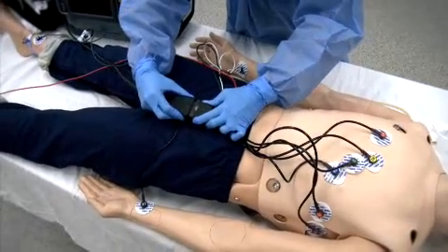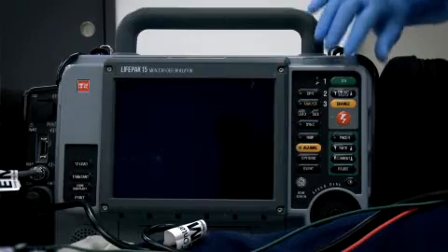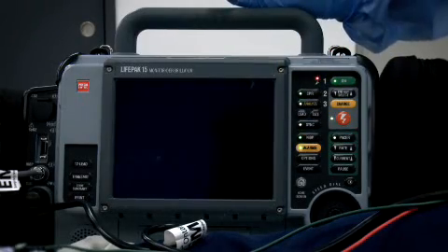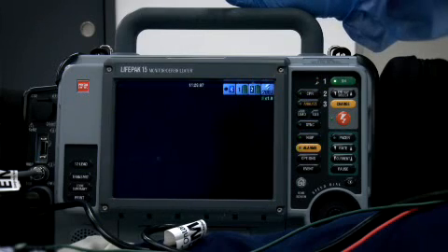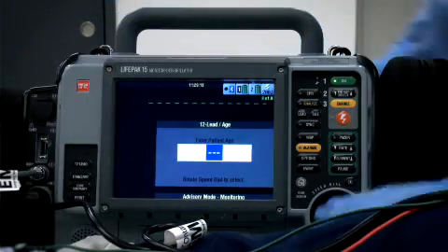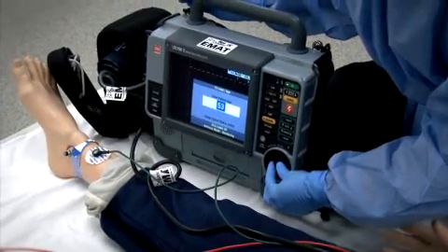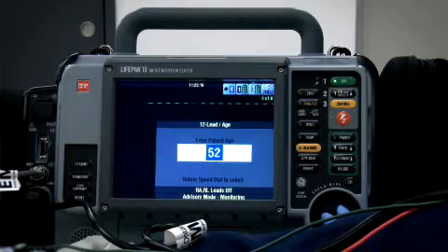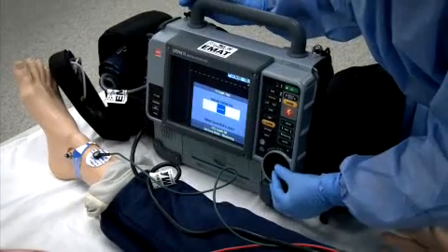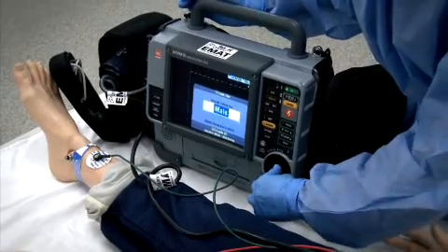To acquire a 12 lead, depress the 12 lead button on the left side of the monitor display. You'll be required to enter the age and gender of the patient, which is used by the analytical software along with the electrical input from the leads to determine the presence or absence of STEMI. Turning the large dial on the bottom right, set the age and depress the center of the dial to confirm. Then enter the gender in the same manner.